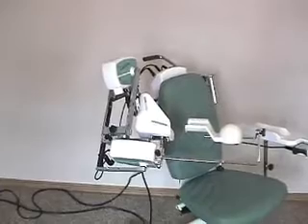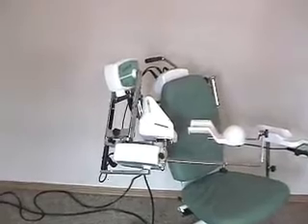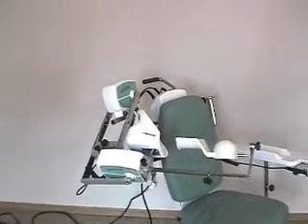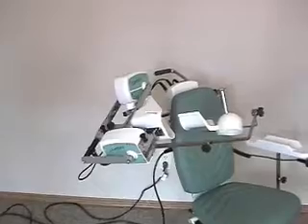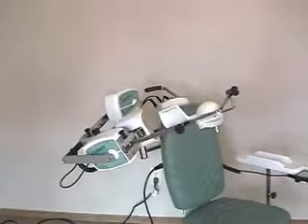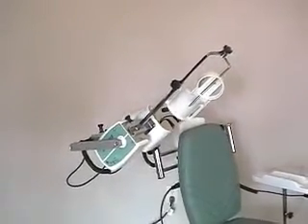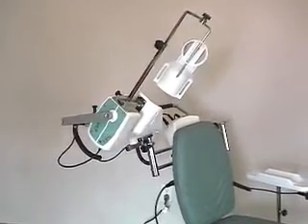For example, if you had 30 degrees of internal rotation — which would show on the display as a minus 30 — from minus 30 back up to zero, you could only have another 70 degrees of external rotation. So you could potentially have, in the case of 50 to 150 degrees of abduction, a rotation setting from minus 30 to 70. That would be 30 degrees of internal plus 70 degrees of external, giving you 100 degrees total. You could not exceed that with your abduction settings of 50 to 150.